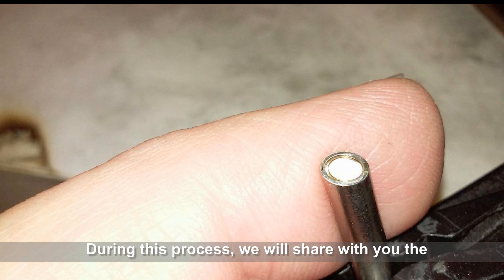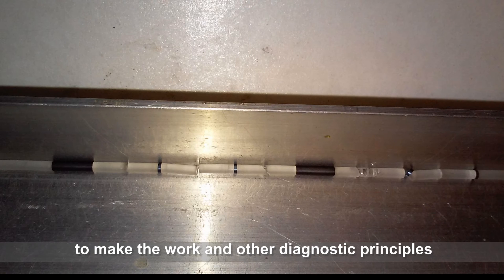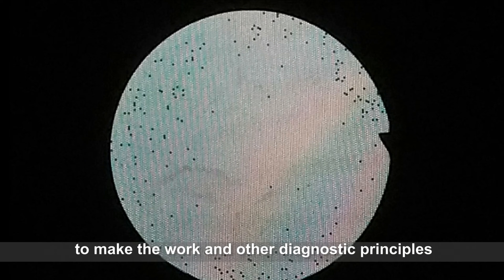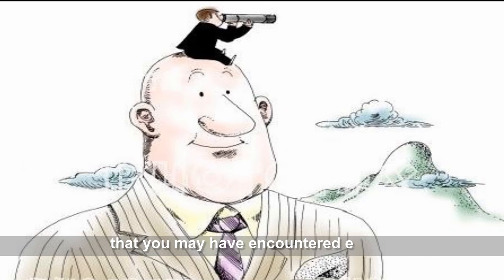During this process, we will share with you the tips and tricks to make the work and other diagnostic principles for evaluation of damaged scopes that you may have encountered easier.